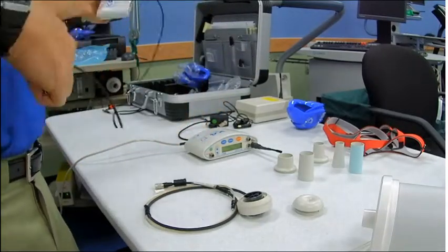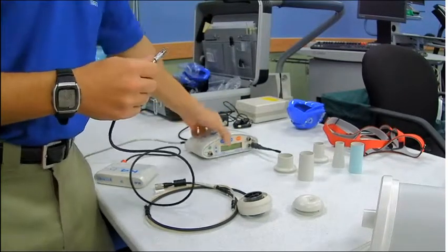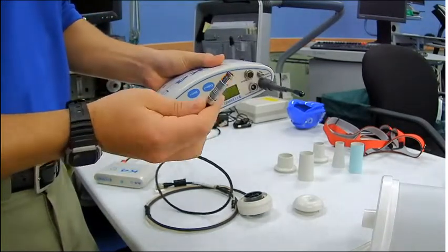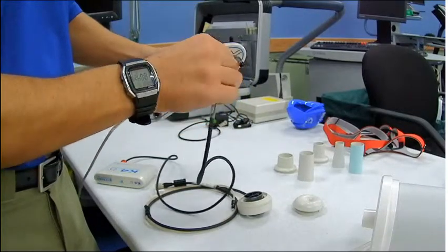Pops right in. What we'll do is grab the K4 side and find the right labeled 6-volt connector, and it should plug right in there.